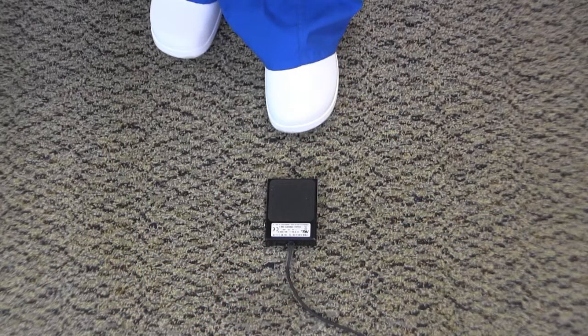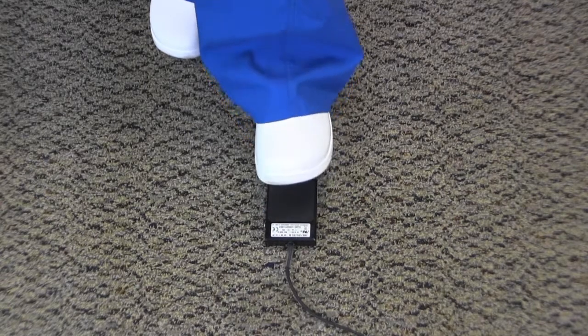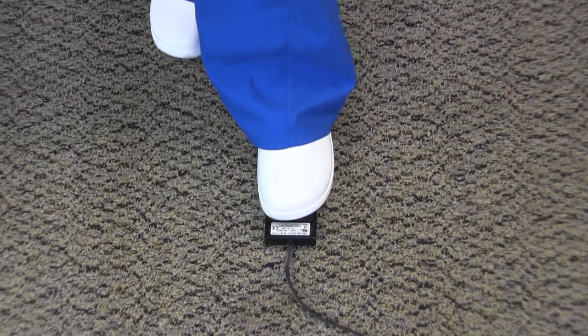The optional foot pedal replaces having to press the start stop button in manual mode. Press down on the pedal to start the pump. Press again to repeat the fill process.